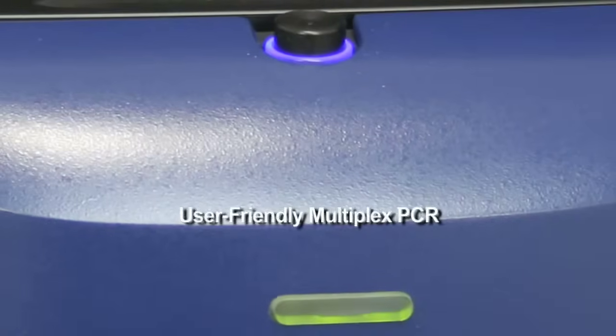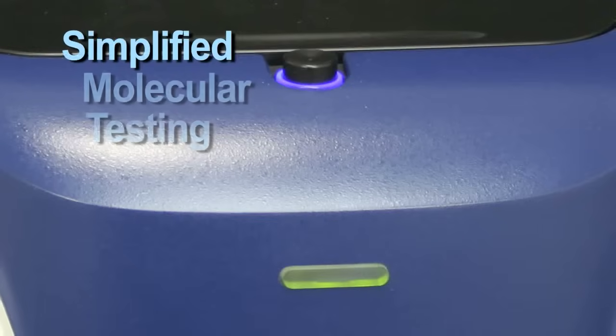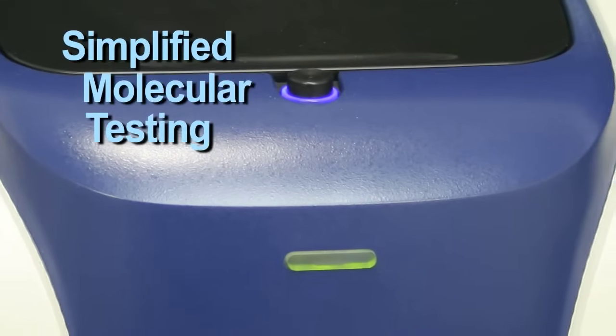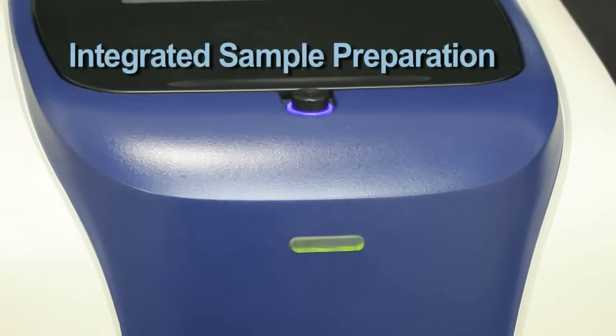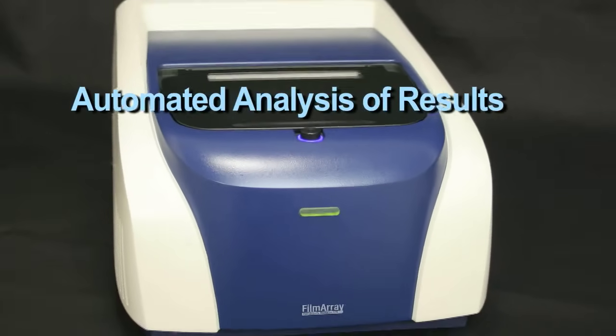FilmArray is user-friendly multiplex PCR. This innovative system simplifies molecular testing through a completely automated protocol, beginning with integrated sample preparation and ending with automated analysis of results.